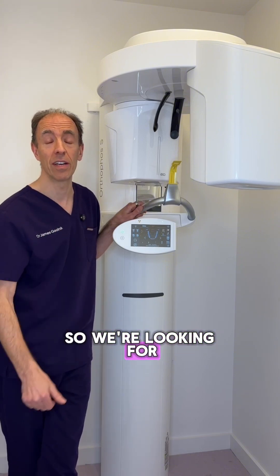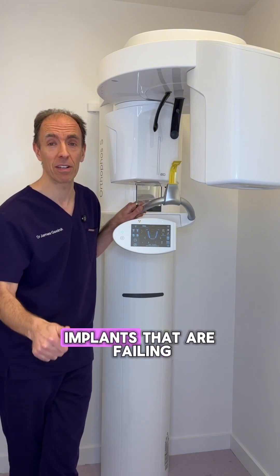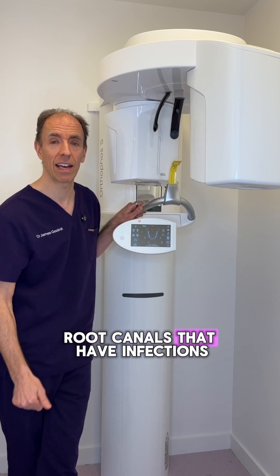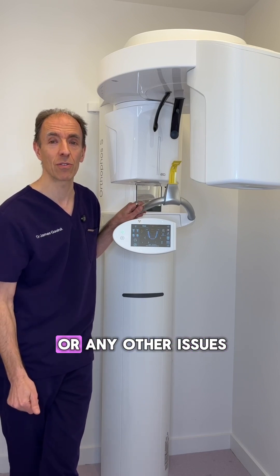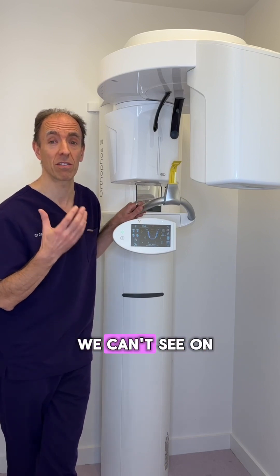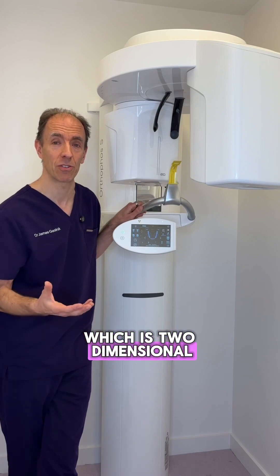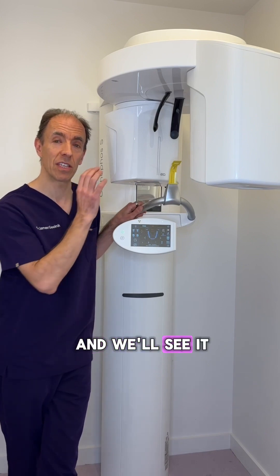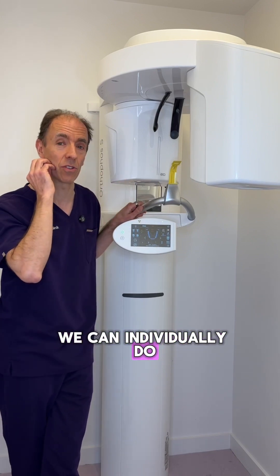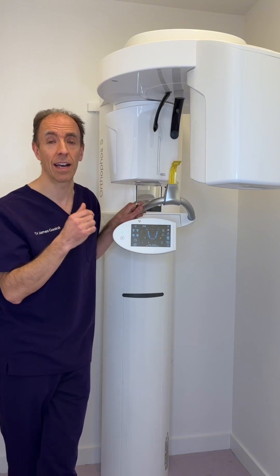So we're looking for gum infections, implants that are failing, root canals that have infections, or any other issues in the mouth that we can't see on a normal x-ray, which is two-dimensional. And we can see it instantly with low radiation — we can individually do a tooth or the whole jaw as well.